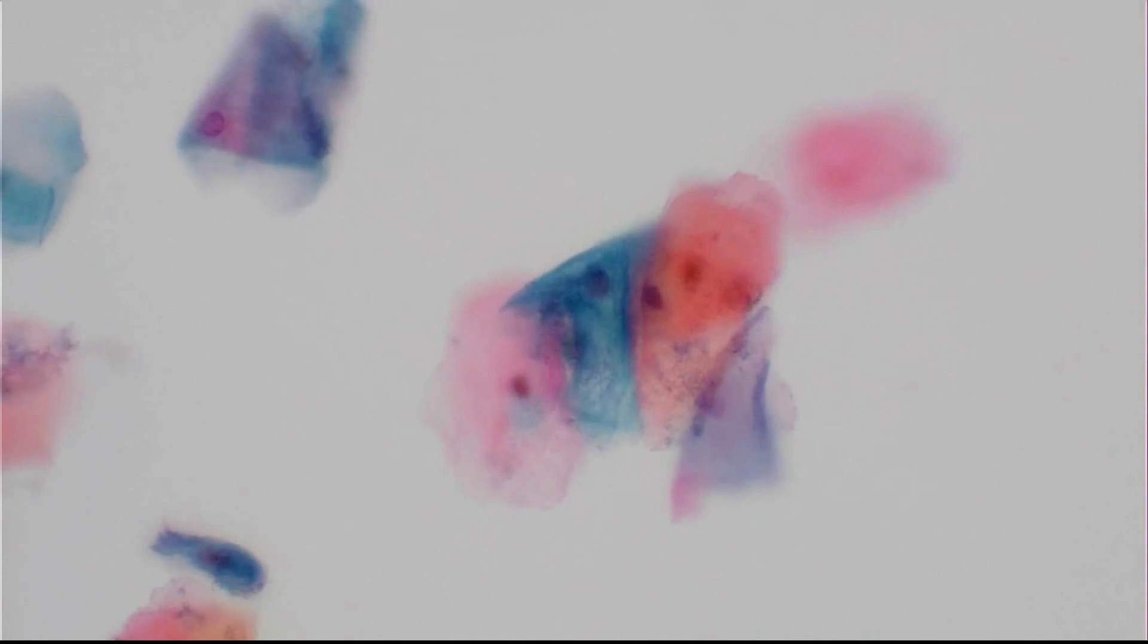As I move the stage and focus on different areas of this PAP slide, you can see the image quality, clarity, and just smooth transition.